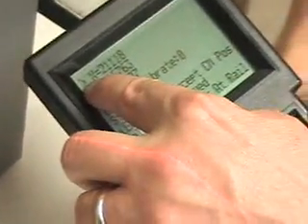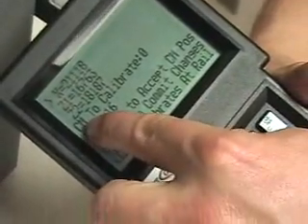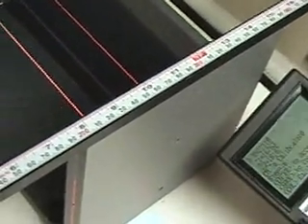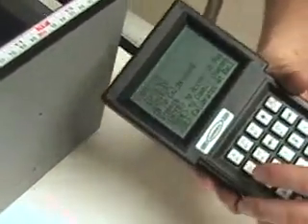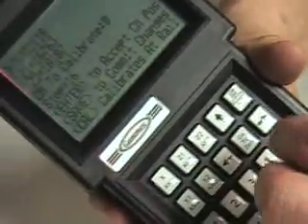To select the X arm, choose it on the pendant, then use the up and down arrows to select the centimeter to calibrate. As you can see, it says zero — centimeter to calibrate is at zero, which is the 300 mark. Now we're going to use the down arrow to go to negative one. We want to take zero and go all the way out to the end of the ruler, which is negative 30. So once you do that, you go back to zero, and then go from zero to positive 30. To do the negative side, press the down arrow and it should land on centimeter negative one. It says negative one — if it wasn't, you need to adjust it.